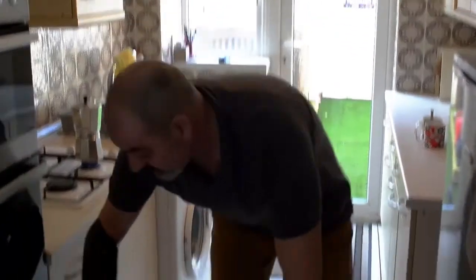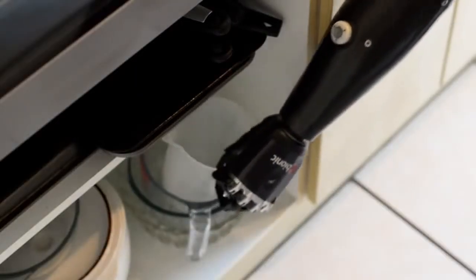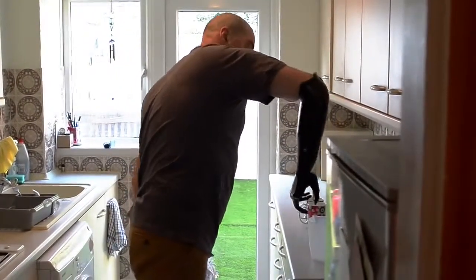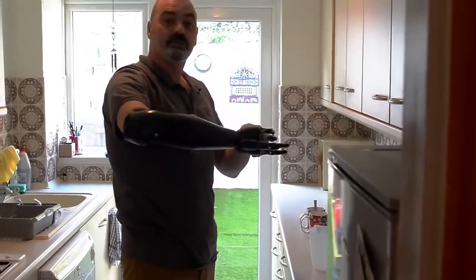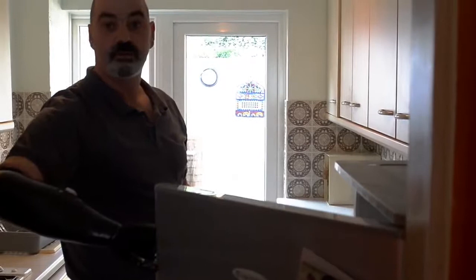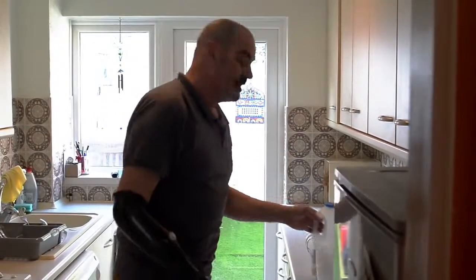Which is a bit weird — deactivate the wrist, and now I can pick up my jug. The good thing is the fingers are in this position so they hook in nicely into the side of the fridge, which gets me to open the door quite easily, and then we come out and we're done.